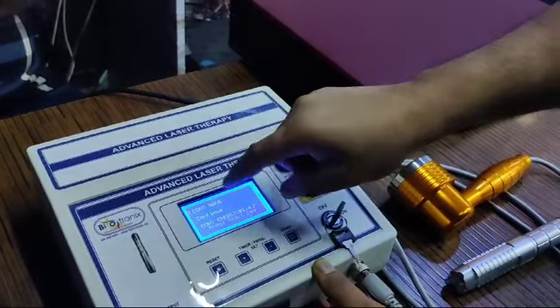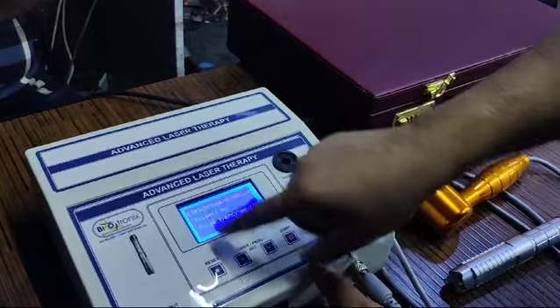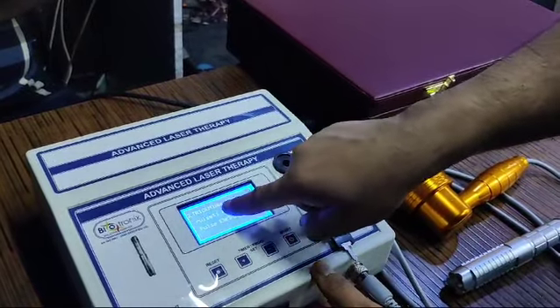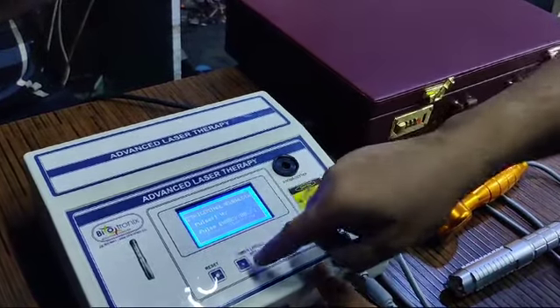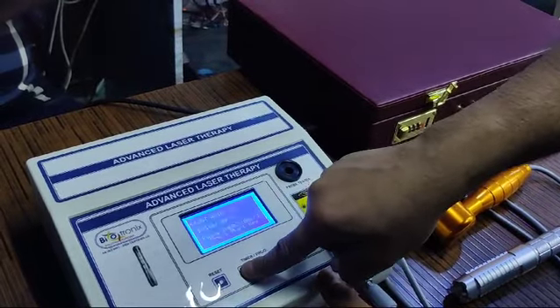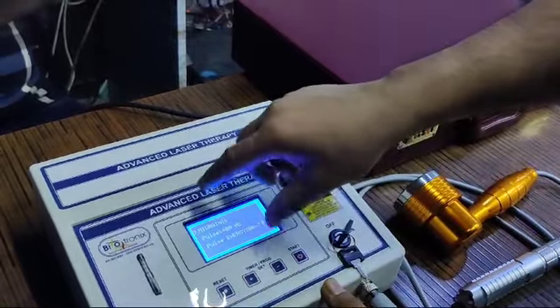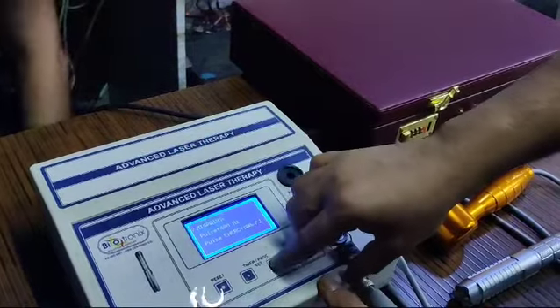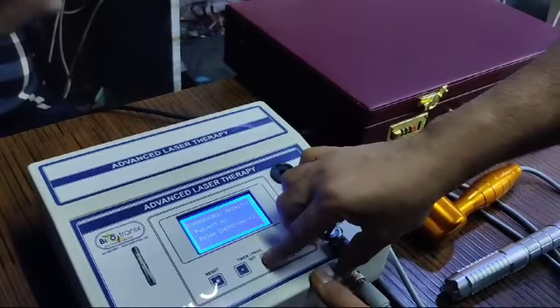If I go to the second one, I will get the name of the disease with the parameters saved. If I go to the third one, fourth one, like that I can go through all the 45 programs. Currently I'm starting in the continuous program.